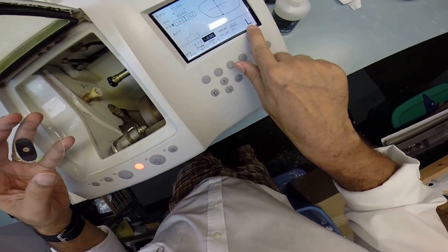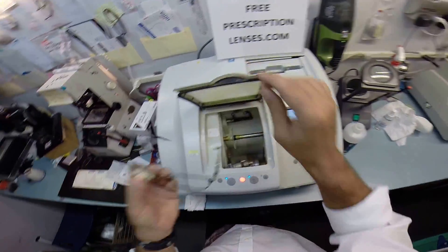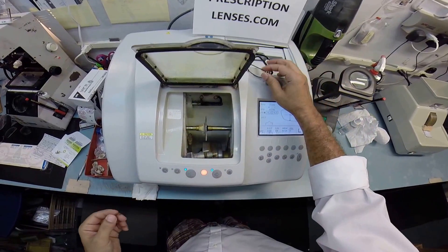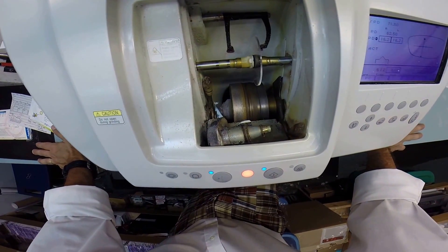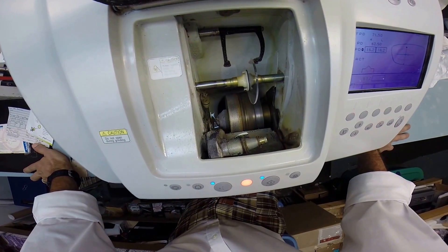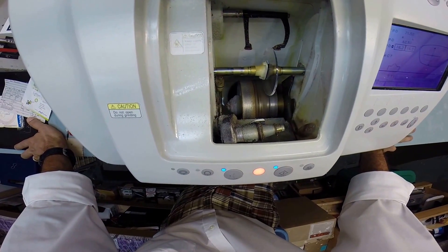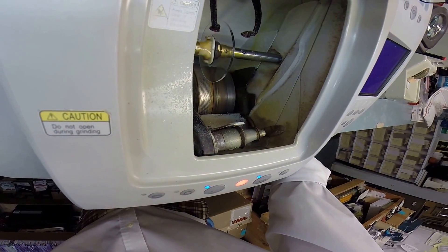Now I want to go ahead and begin working on your left lens. I'm going to flip that over to L — which means not right — and hit start. The same thing that happened before: the calipers are going to come down, but this time they're going to trace the shape of the left side of the frame to make sure it'll fit. Always starting with the rear surface, then moves over and traces the front surface. And as soon as this lens begins cutting, I'm going to continue to work on your right lens.